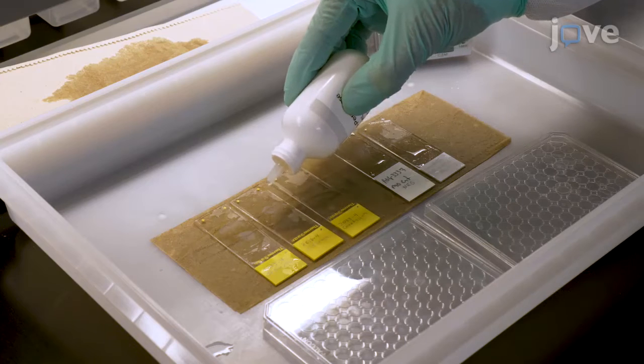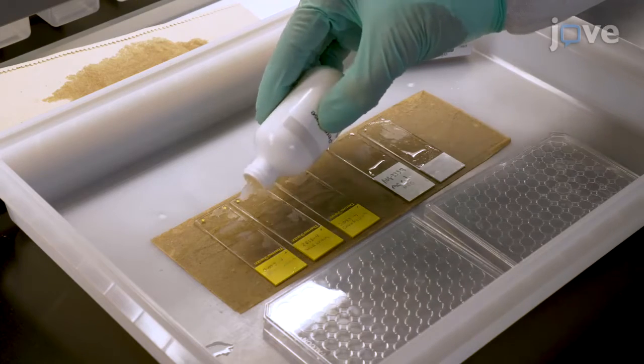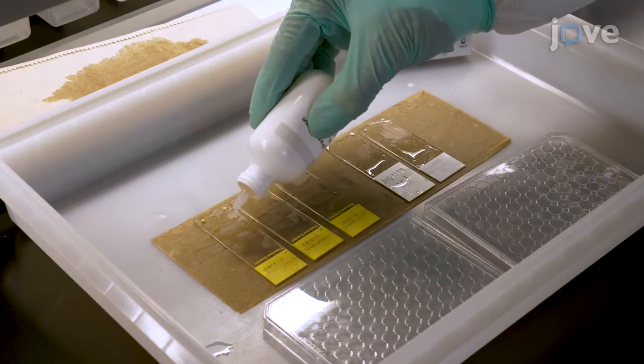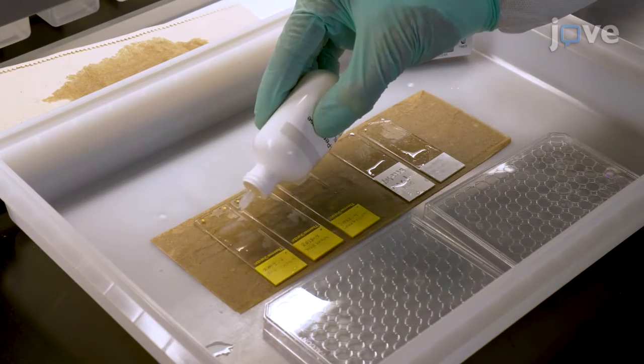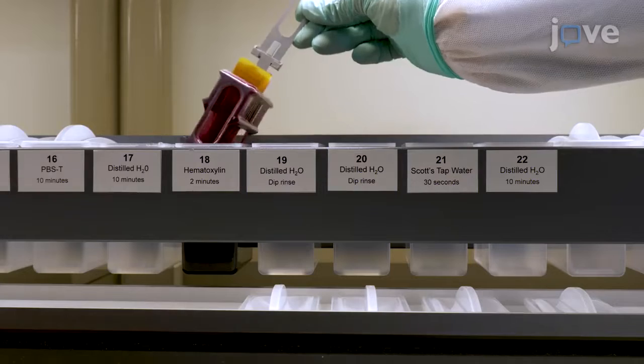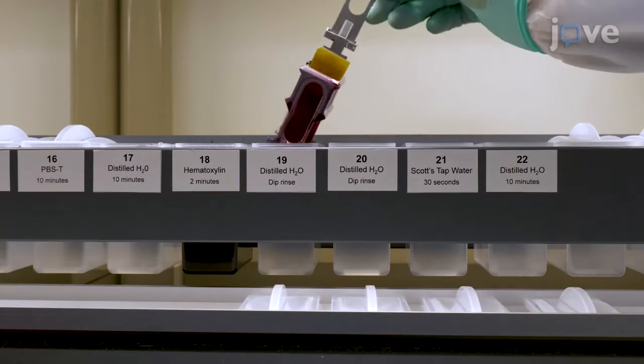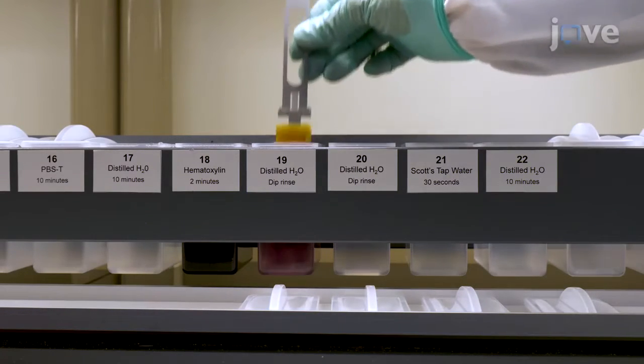Rabies diagnostic testing is important for the initiation of post-exposure prophylaxis in humans exposed to rabies virus. IHC is one of the most commonly performed assays on formalin-fixed tissues, and with specific antibodies, it can be used for the detection of respective pathogens.